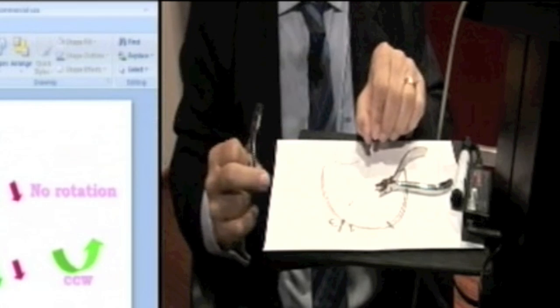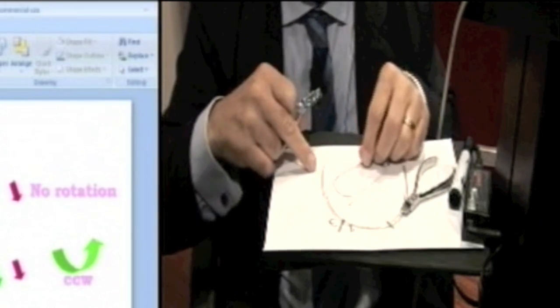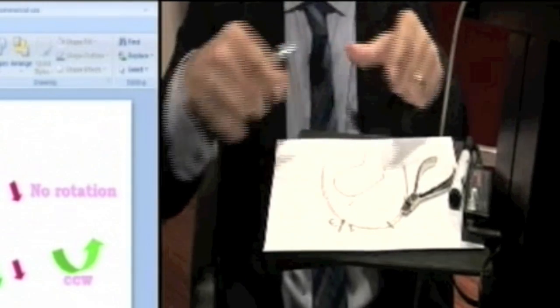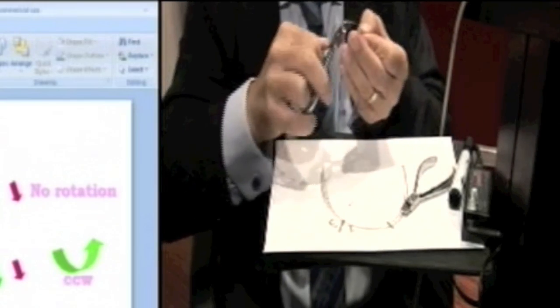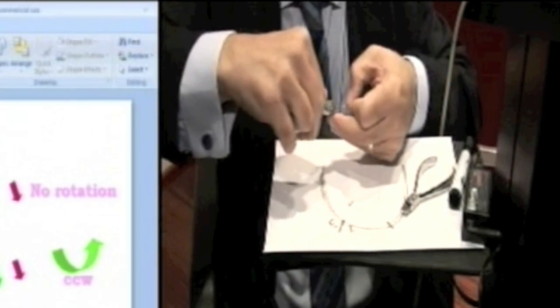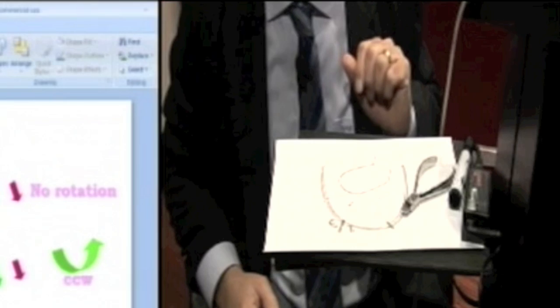Now, every time you do a bend, regardless of torque, you may introduce vertical discrepancies. So the best place to bend is on glass, like a glass slab, because then you can put the wire down and check if it's rocking and rolling. Obviously, it's rocking and rolling from where I put the last bend in. I'm just going to flatten that. You can see now that's much better.